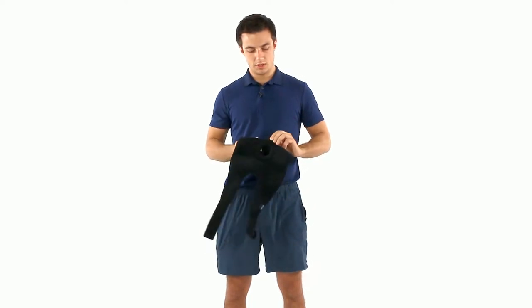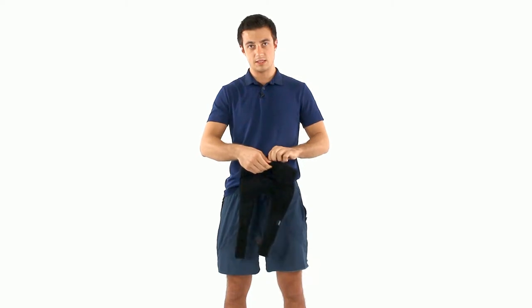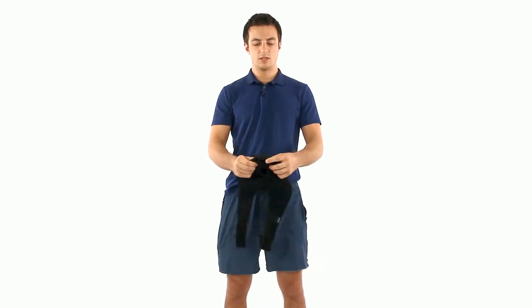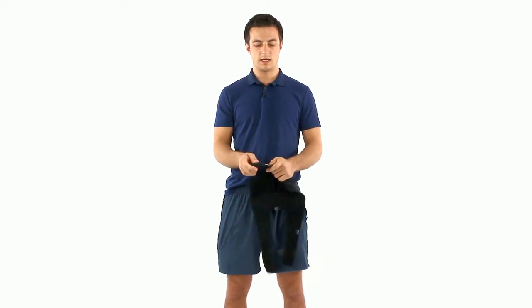What you're gonna see is that there's actually a velcro backing so that it stays in place and doesn't pop out when you're using it. That's gonna be inside of here, and then what's easiest to do is remove that and just bend it and you can easily pull it out. So I have an aluminum stay now.